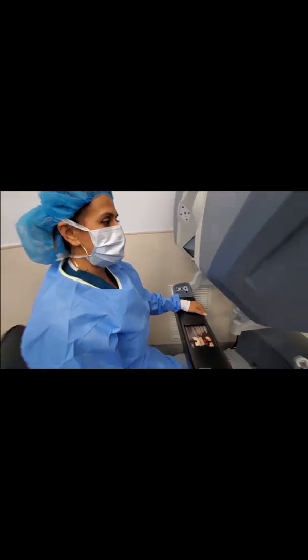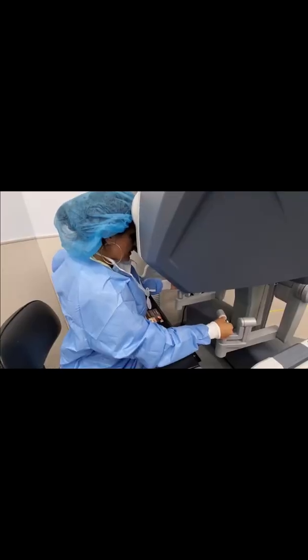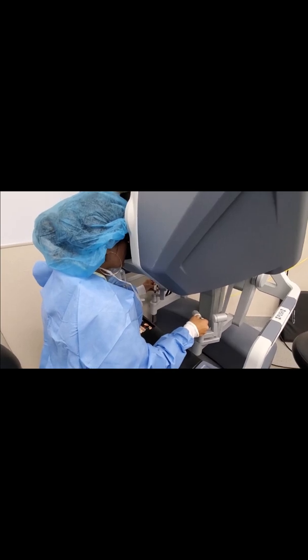If you come take a look — I'm gonna have her come around and videotape this — you can actually look inside of the screen and see what that looks like. So just go ahead and push in. That's what it looks like, and it literally is like a video game. You can move the camera by pressing on the camera here and then just turning this over. Yeah, that's perfect — let's start on this side.